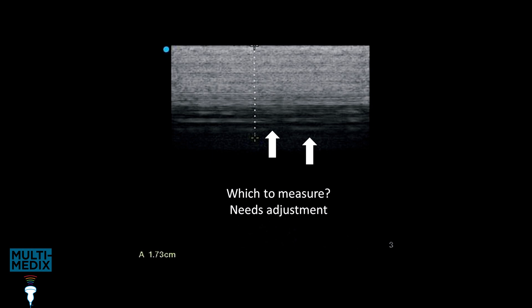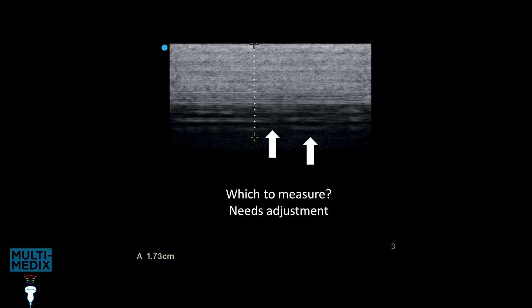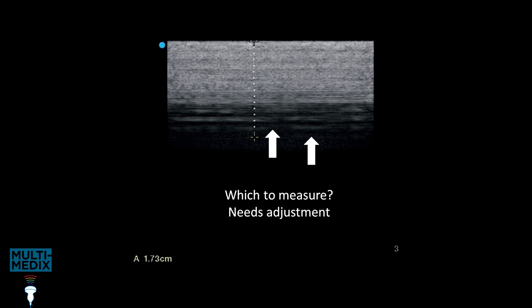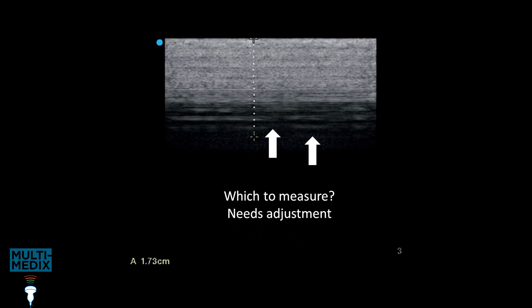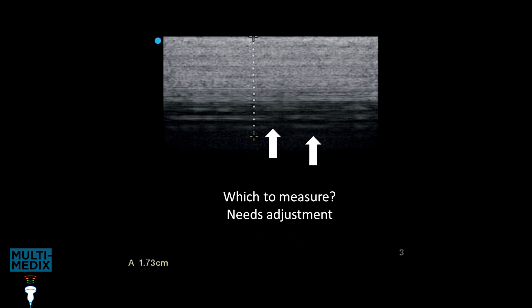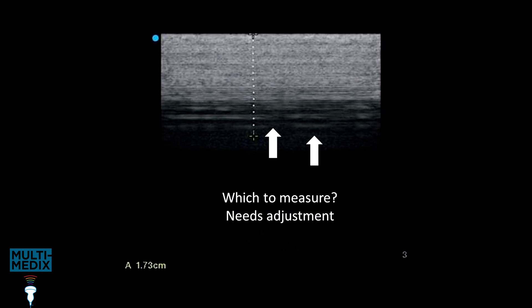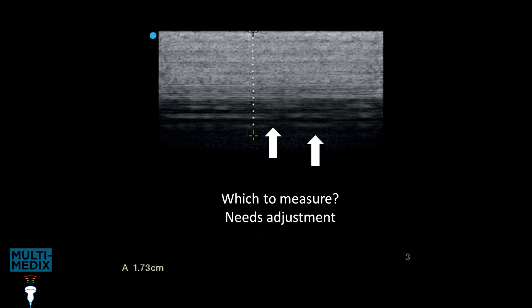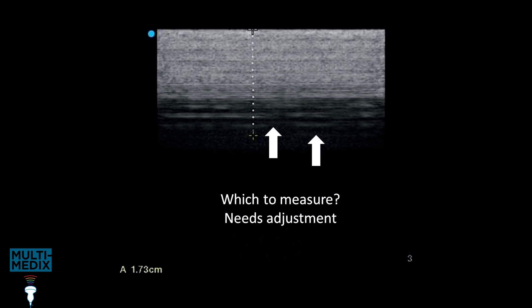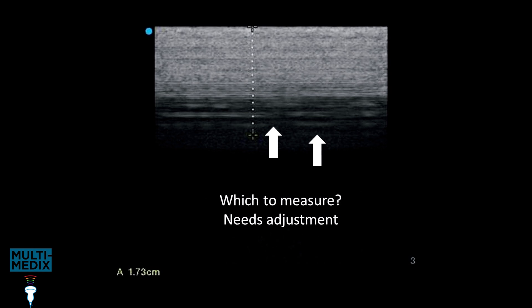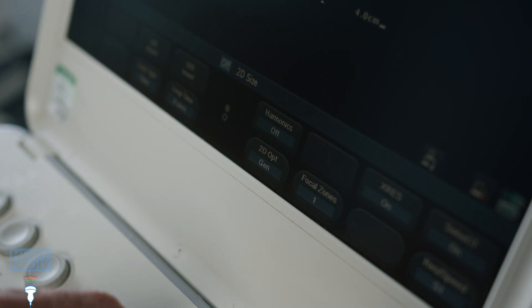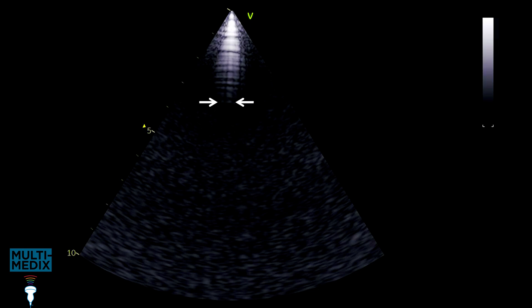Now we're at the key point of this process. The sensitivity assessment uses a measurement of the deepest reverberation depth. I apply the rule: if you can see it, measure it. If you can clearly identify the deepest reverberation, these are the correct settings. The question I ask myself at this point is, would someone else identify the deepest reverberation at a different point? If I'm not sure, I change the settings until I get an unequivocal image. The adjustment involves toggling the frequencies and tweaking the gain until you get an unequivocal image where you think anyone else would make the same measurement.